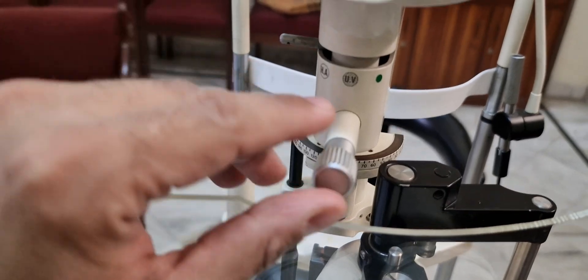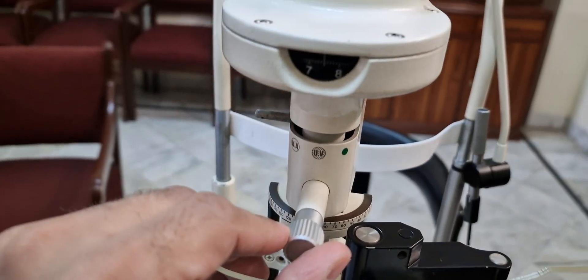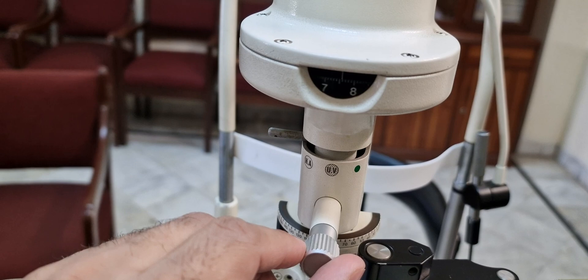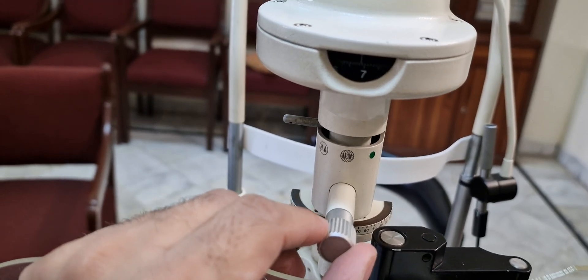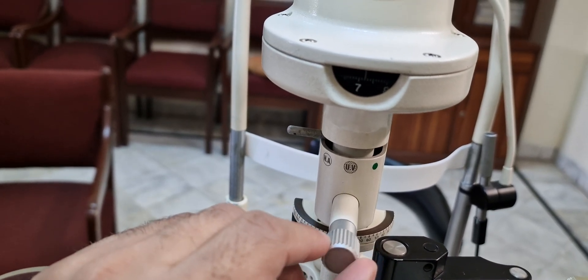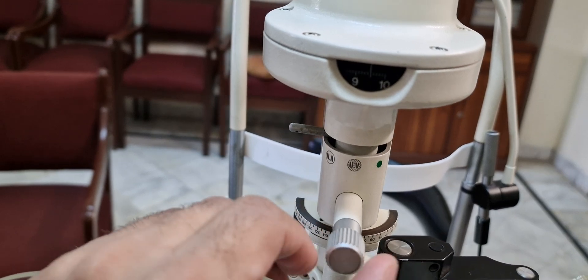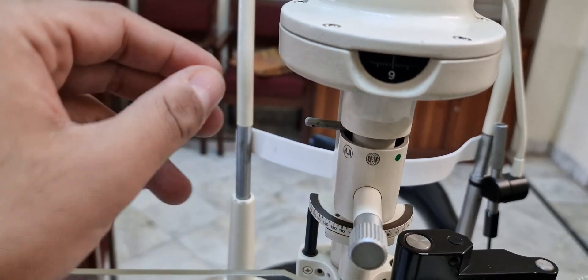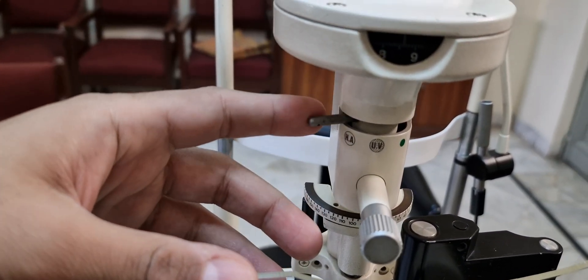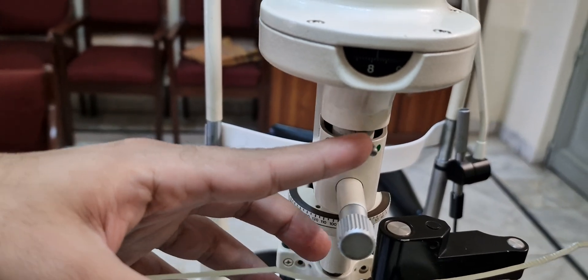Moving upward, we can see there is a slit present. This portion is used to adjust the slit height. You can see the numbers here — this is in millimeters, so we can adjust the slit height with the help of millimeter markings. You can see it goes up to 10 millimeters.